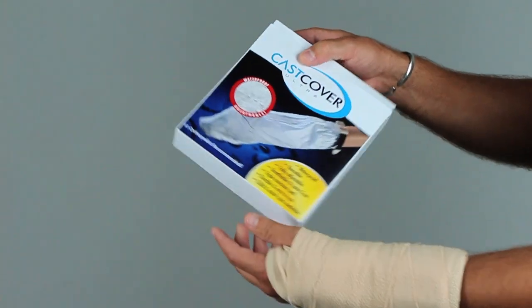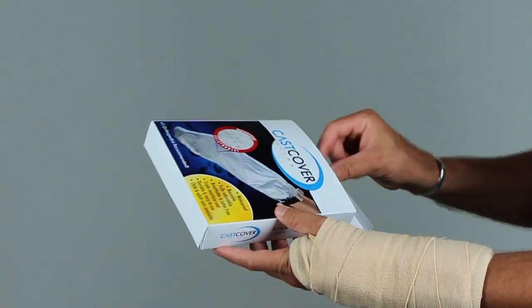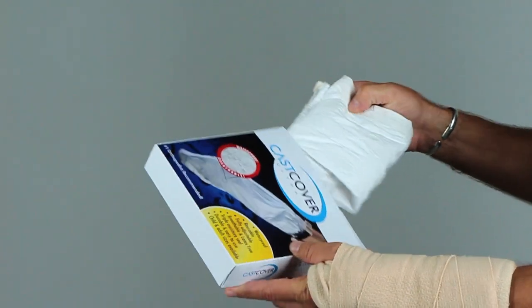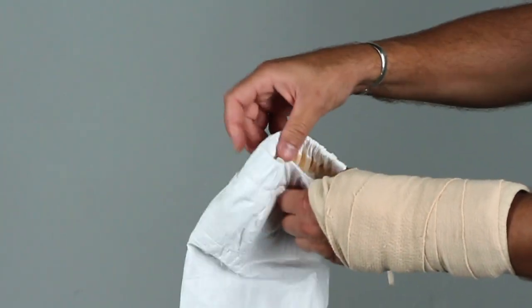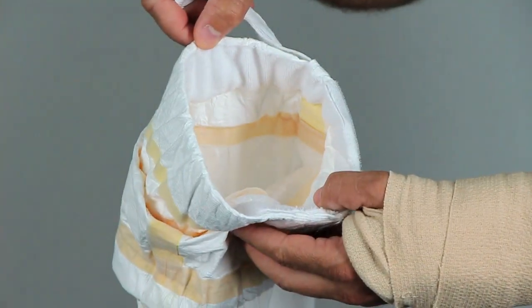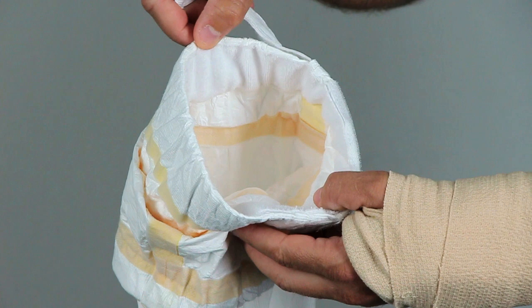Let's begin by removing the Cast Cover Ultra from its packaging and fully extending the cover. You will immediately notice that our product is larger than any other cover on the market, allowing for an easy and pain-free experience.